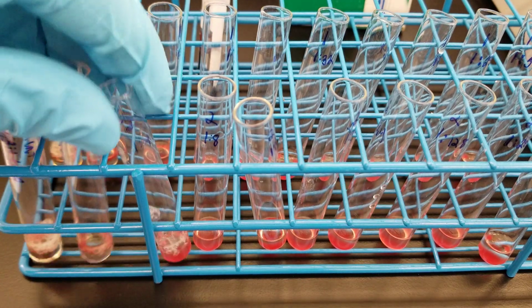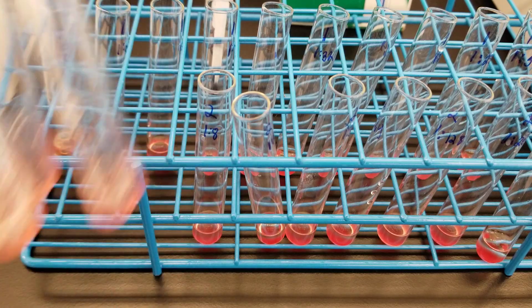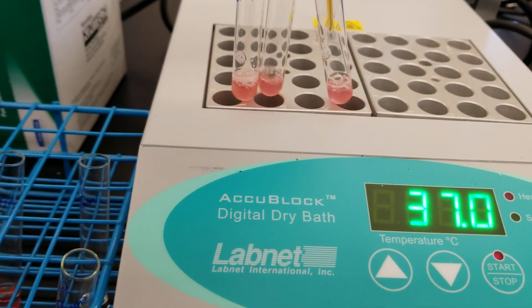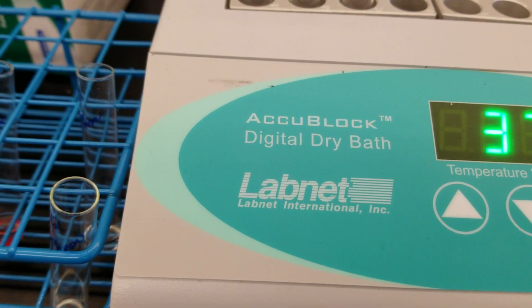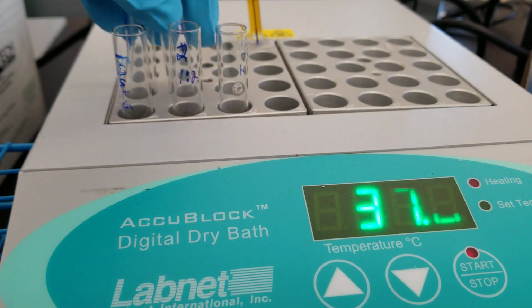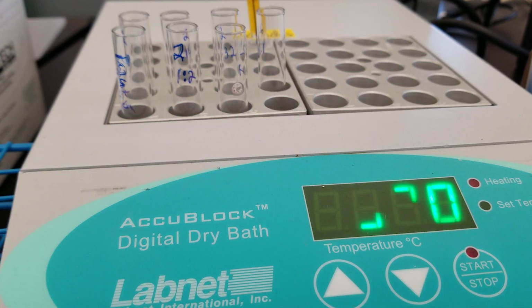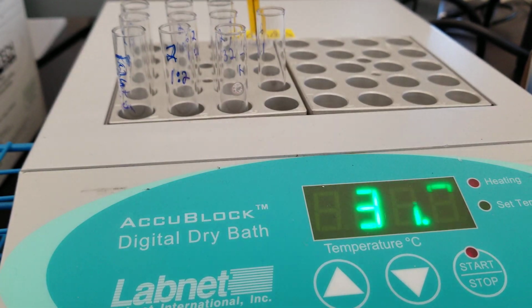All right, I'm gonna swirl them gently. And I'm not adding LISS. I'm just going to swirl them and incubate them at 37. So putting them in. Trying to make it so you can see. Here we go. So swirl. I'm going to put patient's second visit together, and then I'll put the first visit together just to kind of make it a little bit easier maybe on myself.